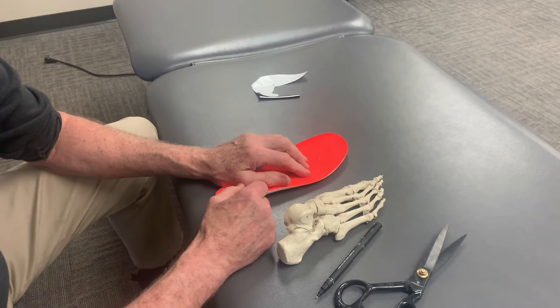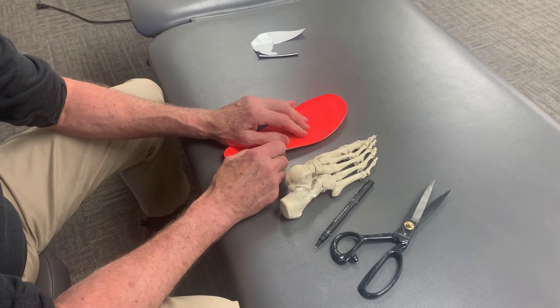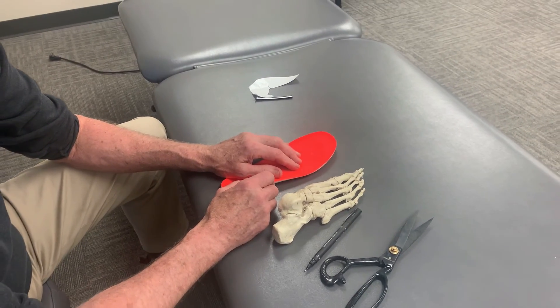Usually you start feeling better after two to three weeks. If you get it wrong, you have to take it off and do it over. If you press lightly at the start, you can redo it and adjust until it feels correct.